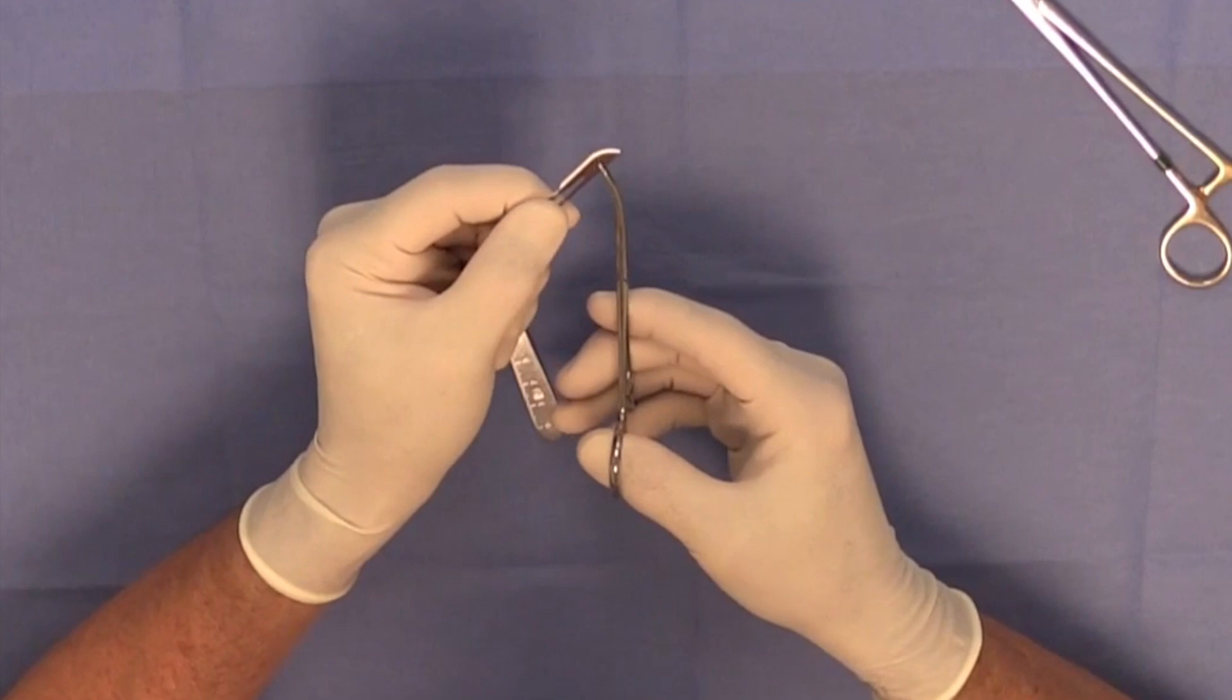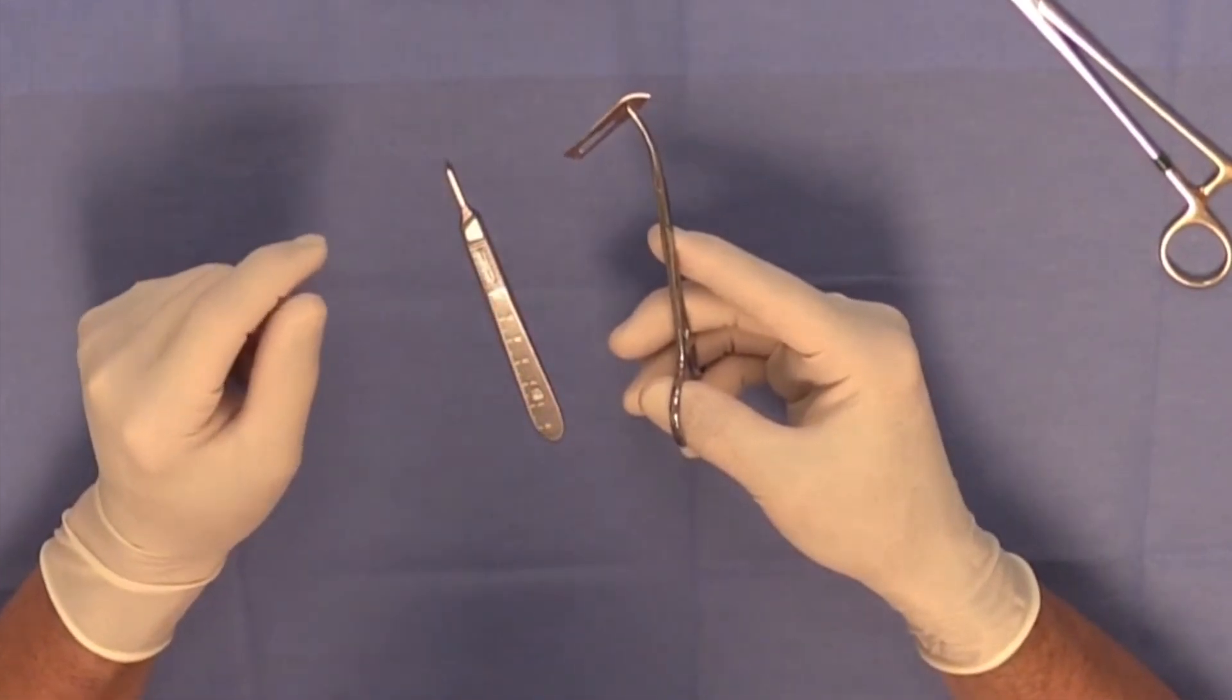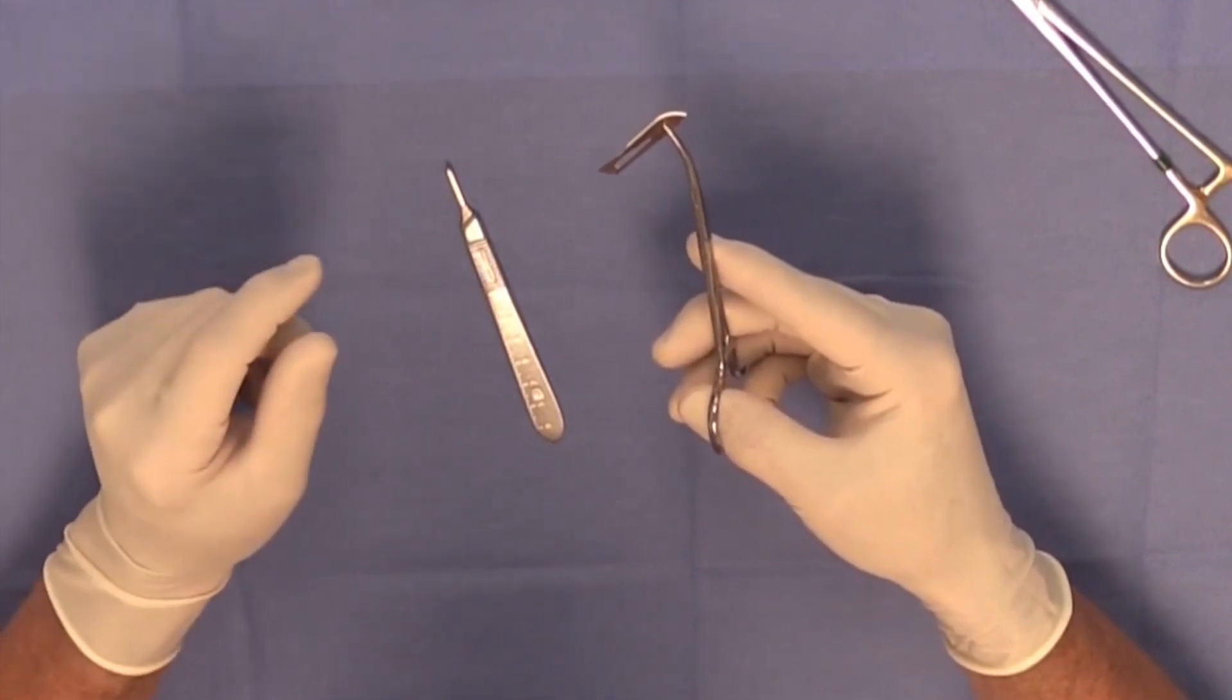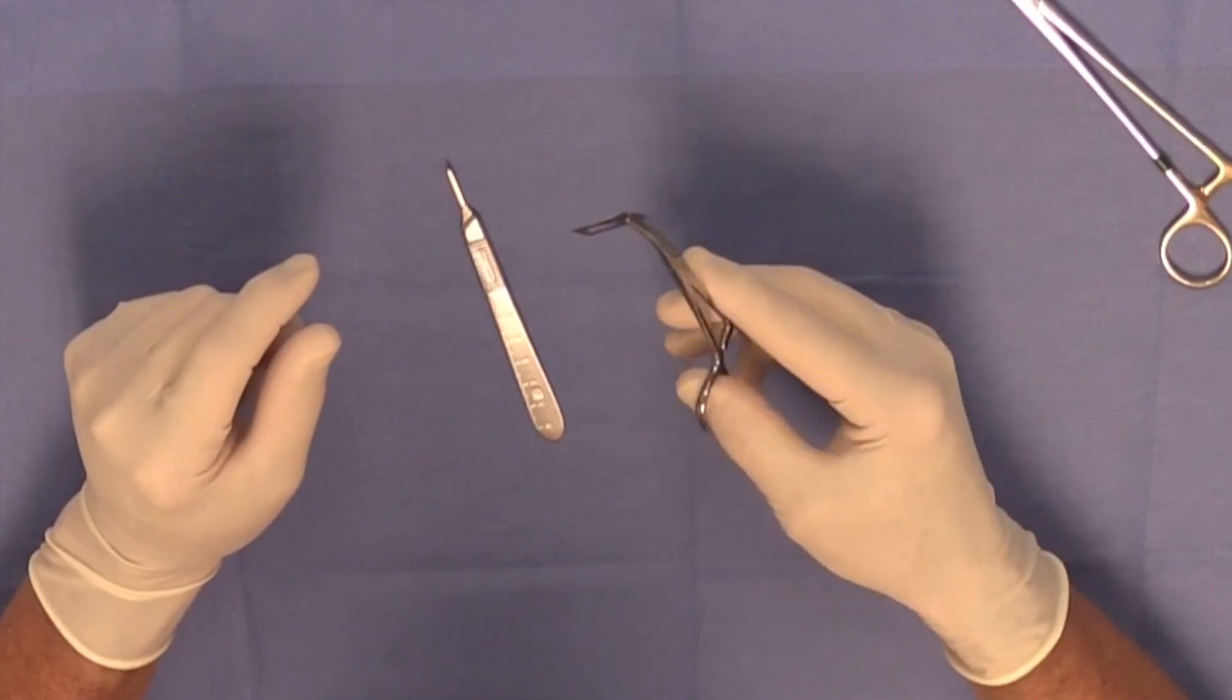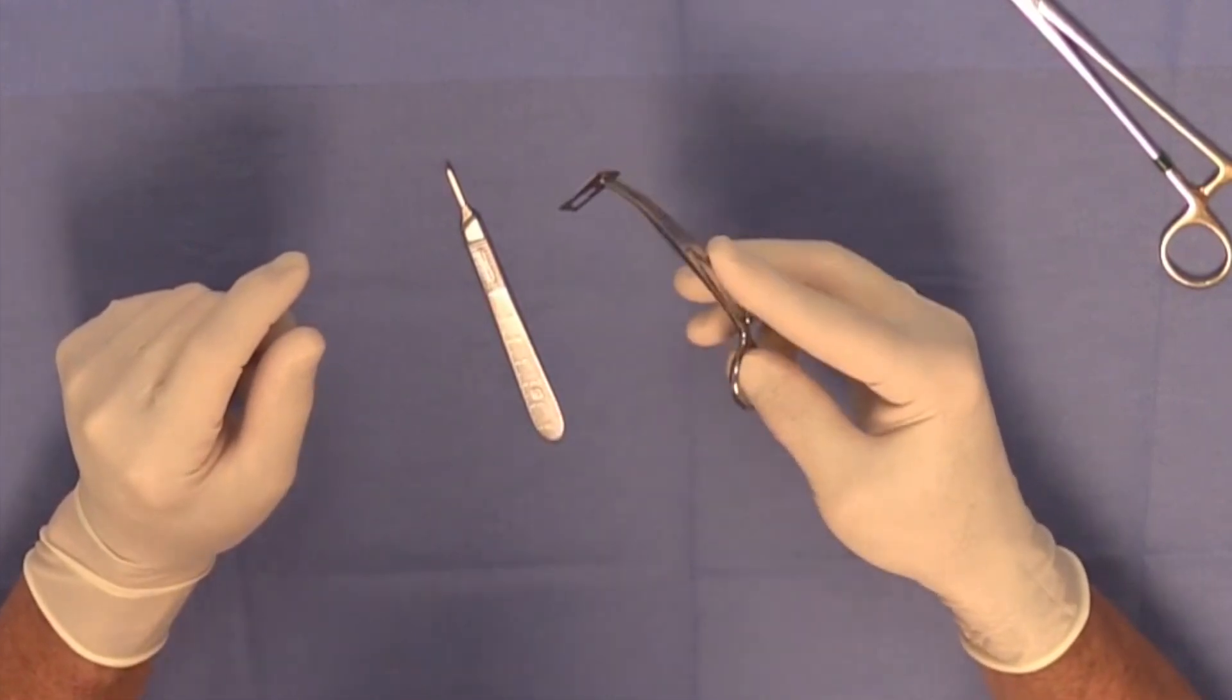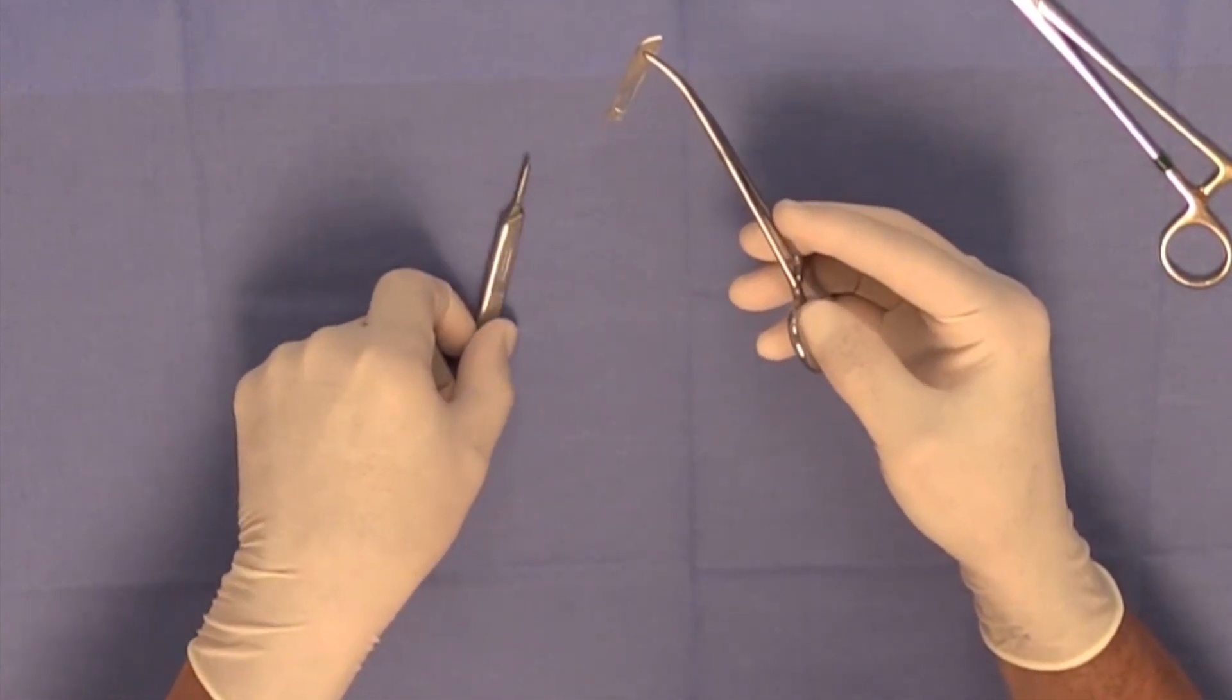Avoid as much as you can handling the blade, not only because it's safer for your hands and not to poke a hole in your glove and cut yourself, but it's also important to avoid manipulating a blade because you want it to be as sharp as possible.